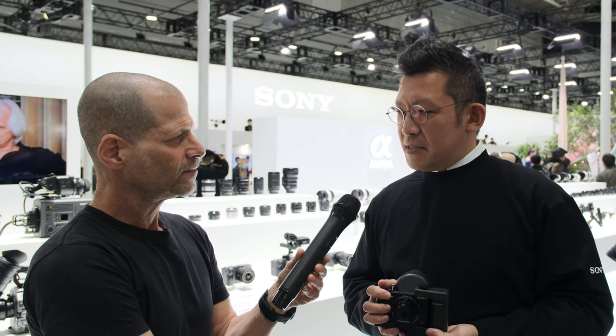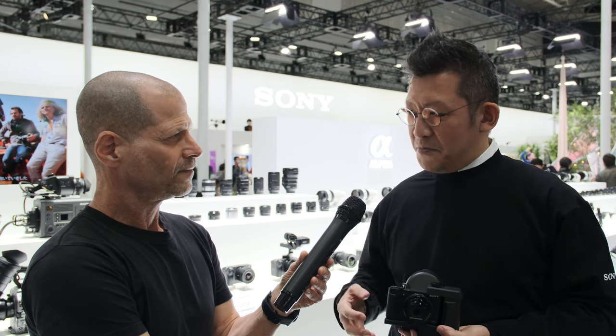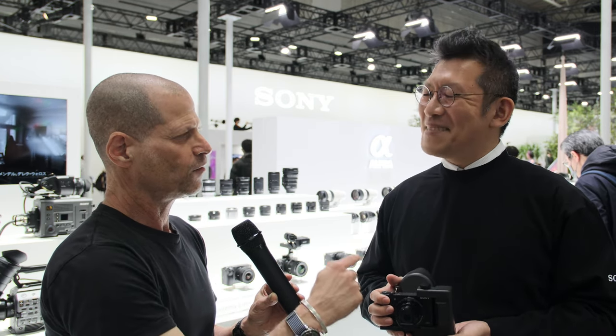After nine years, in 2015, we started to develop a retinal projection product. What does that mean in practicality? Because obviously you're holding here a Sony camera with some housing around it — this is a very interesting product. So what is it exactly?